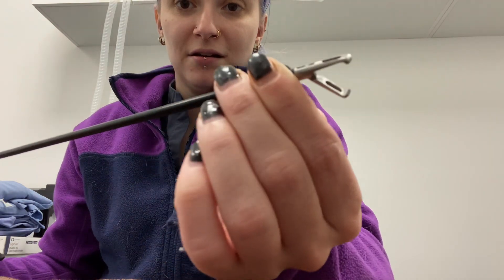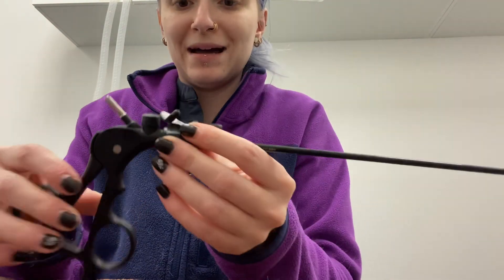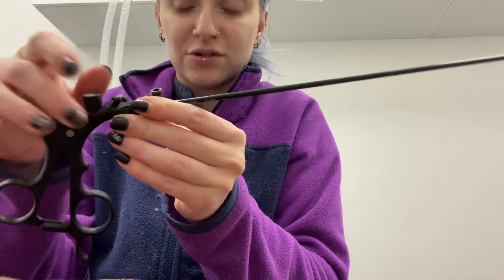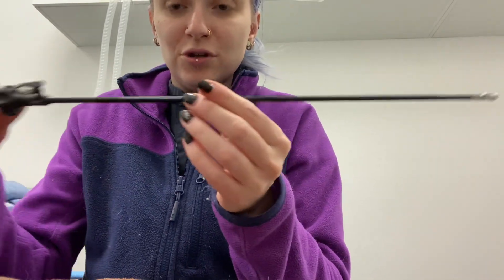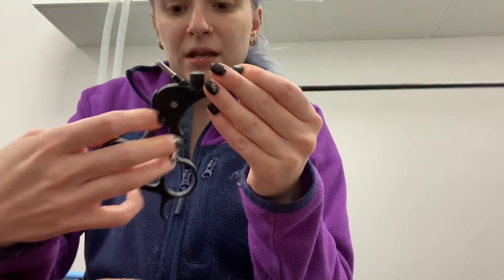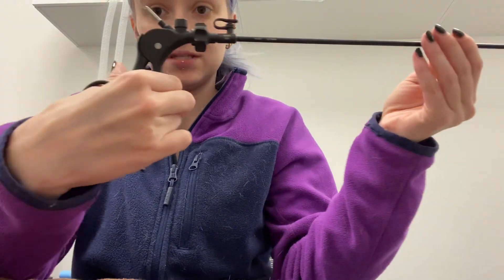When looking at this, you have your grasper head here. This is a section where you can screw something on if you need to — we generally don't use that. This part spins so you can rotate your grasper head, and you have this ratchet here to open and close.